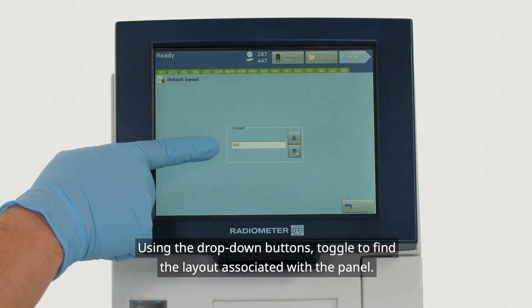Using the drop-down buttons, toggle to find the layout associated with the panel.